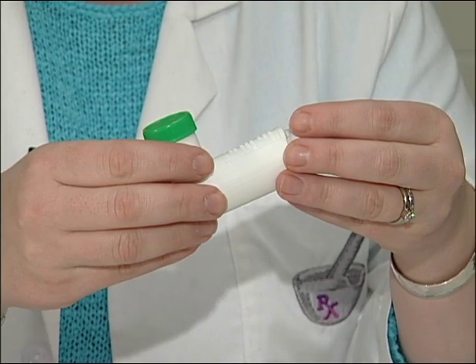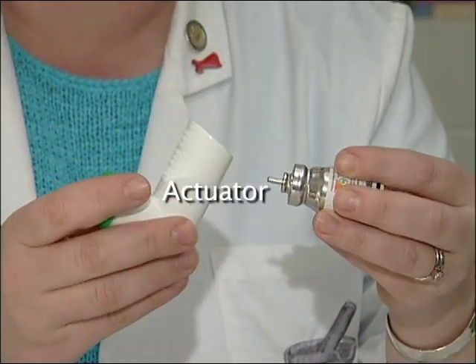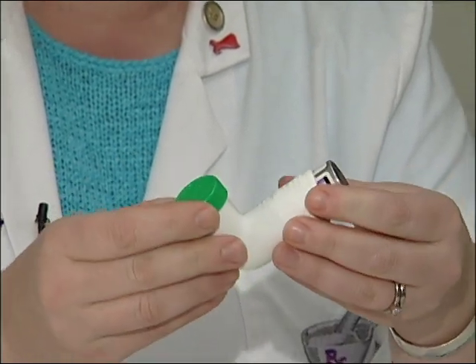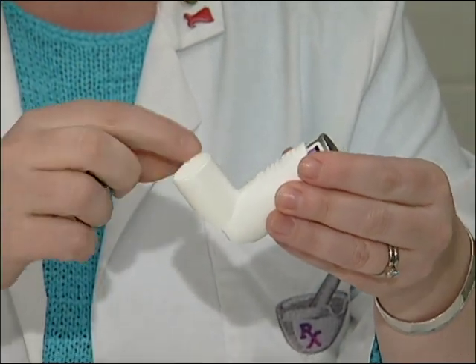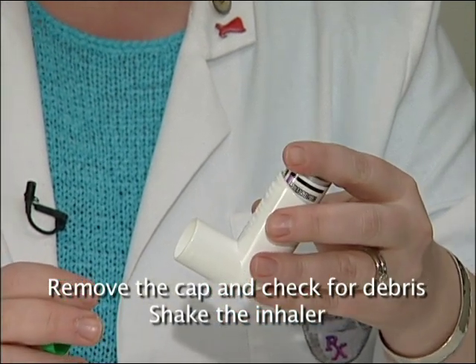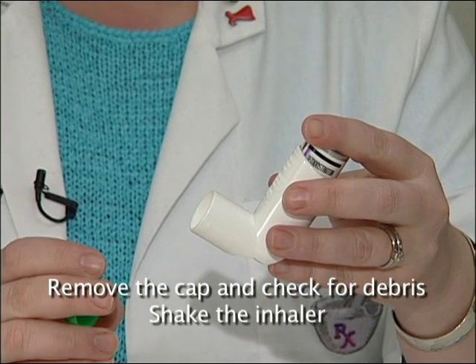MDIs have three main parts: the pressurized container, the metering valve, and the actuator. To prepare the inhaler for use, first remove the cap and check for debris, then shake the inhaler. These are the first two steps that should be completed every time the inhaler is used, regardless of which technique is used to deliver the medication.